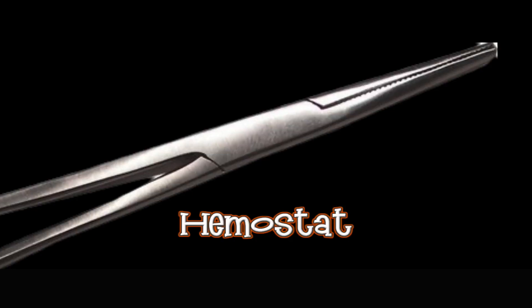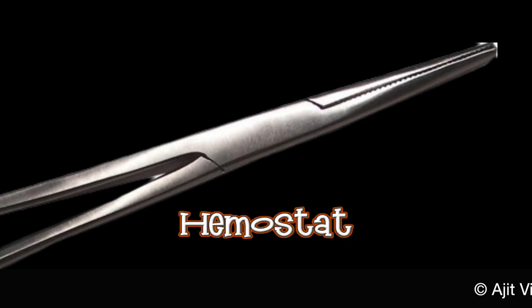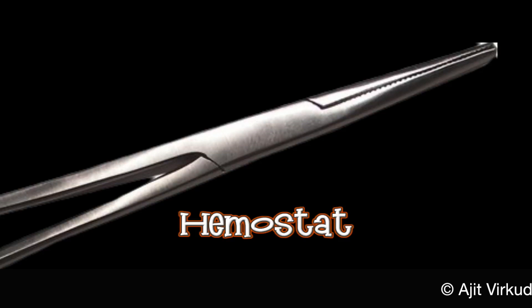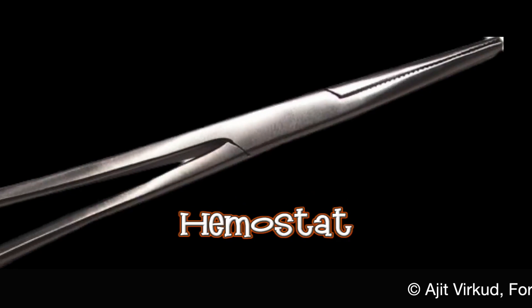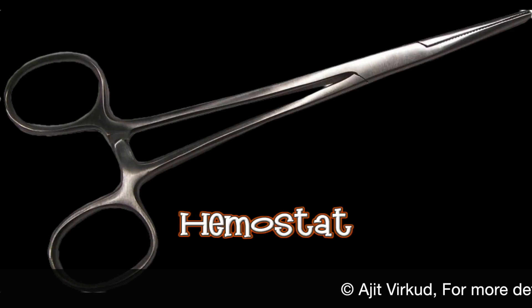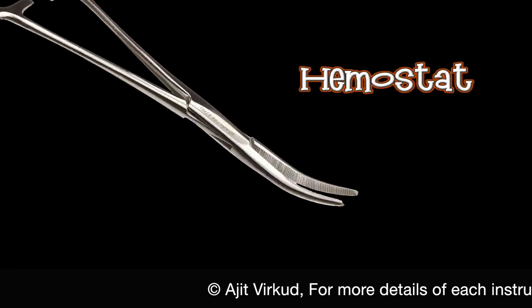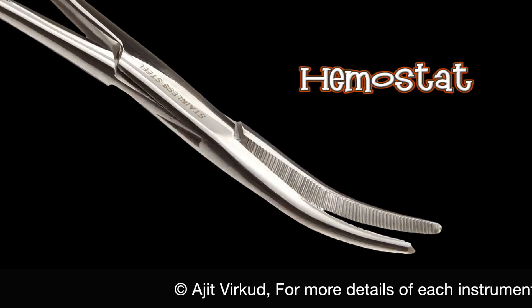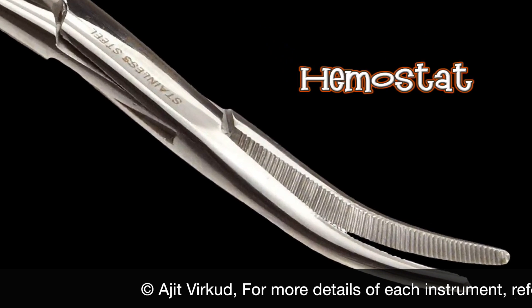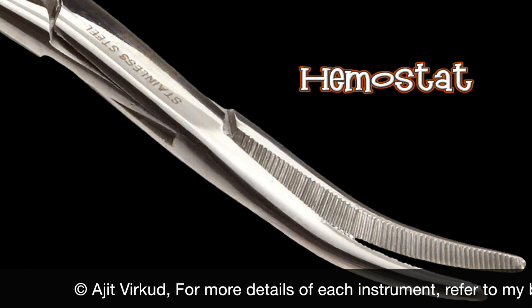The hemostat, also incorrectly referred to as artery forceps, is also known as Kelly's forceps. It can be straight or curved.